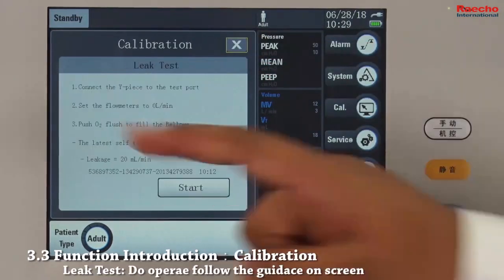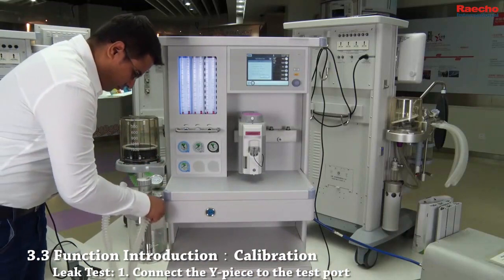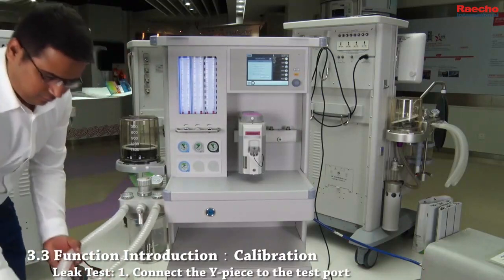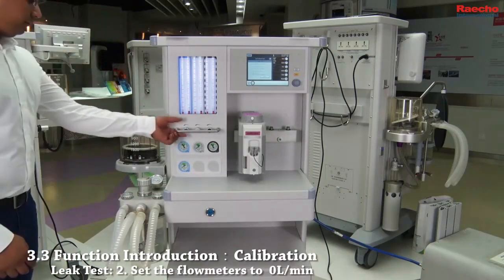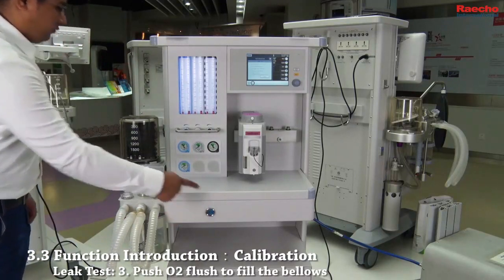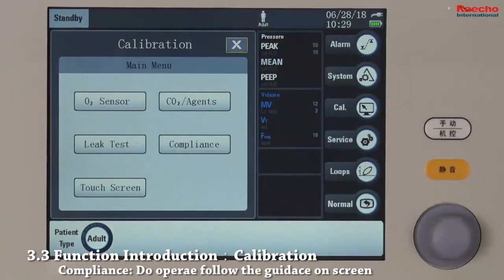Press here to perform leak test. Please follow the instructions on the screen. First, connect the Y-piece to the test port. Second, set all flow meters to 0 liters per minute. Third, push O2 flush button to fill the bellows. Press start. When leak test succeed is displayed, calibration is finished.